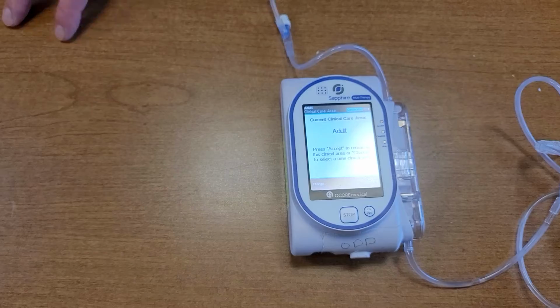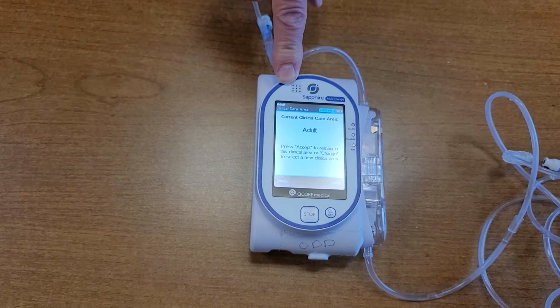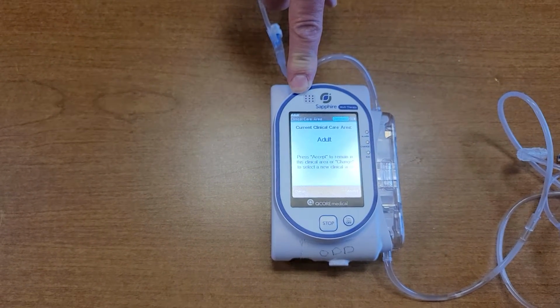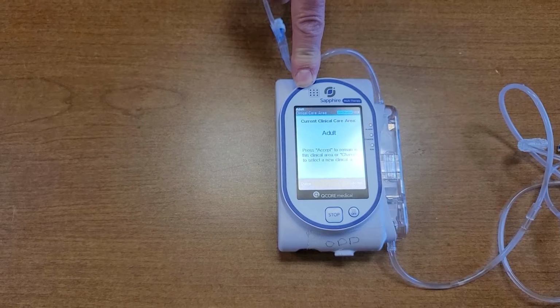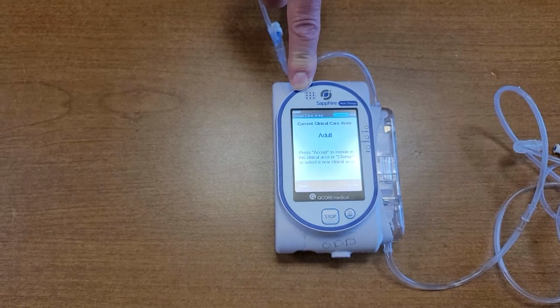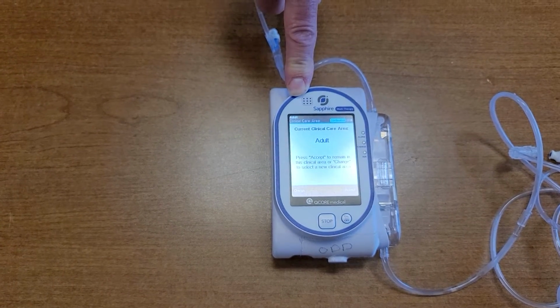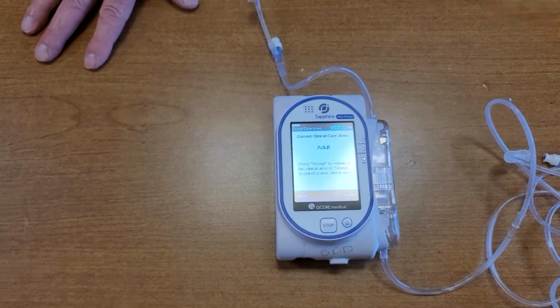But what that tells you is the last time that I updated this pump was in March, a couple months ago. So if you pick up a pump, we did find one in the aircraft, that still says December, that pump will need to be updated. I don't know how that particular pump didn't get updated, but we can put it on the computer and do it ourselves. It takes only a matter of minutes to update these pumps. That part is also very easy.